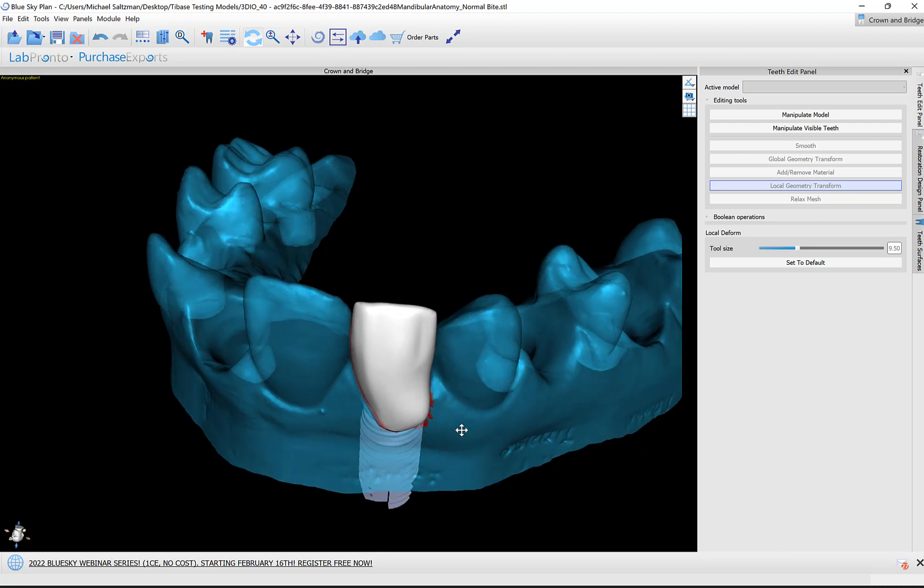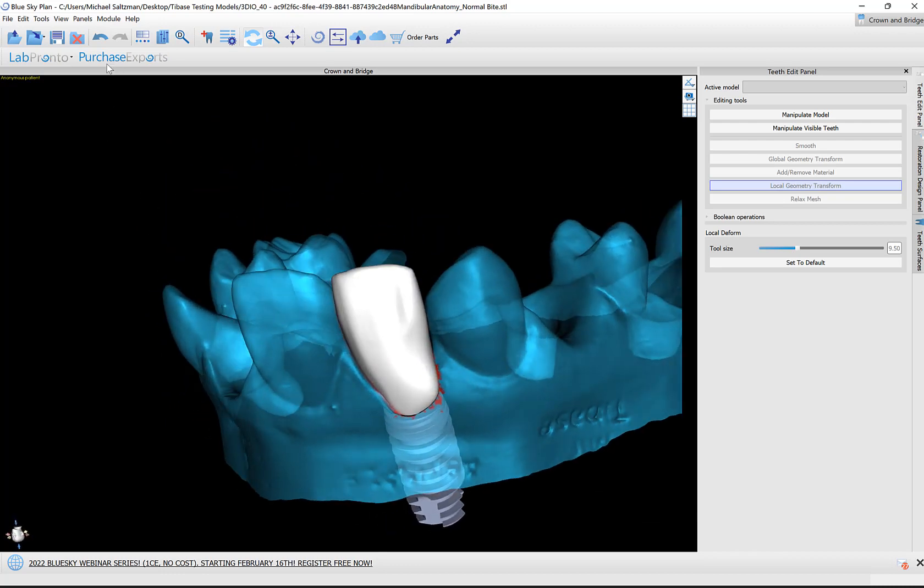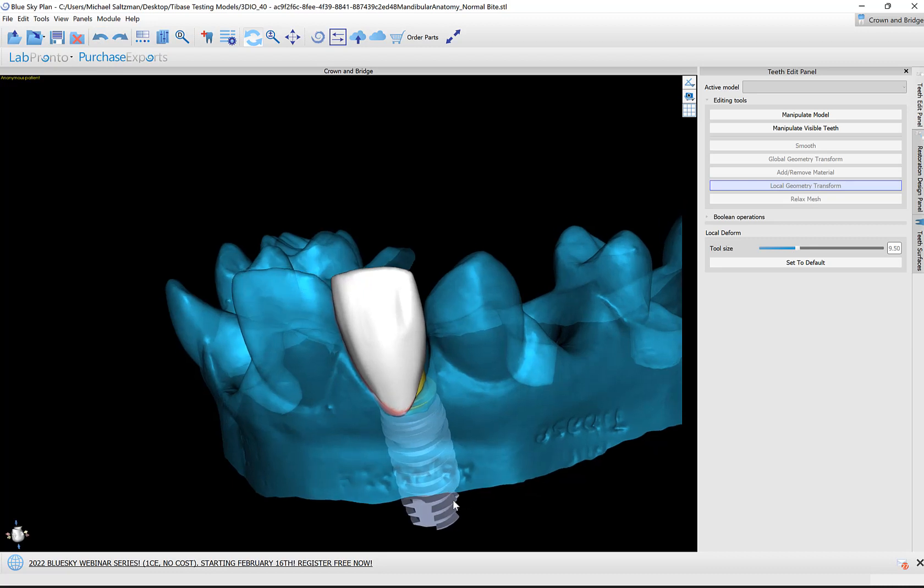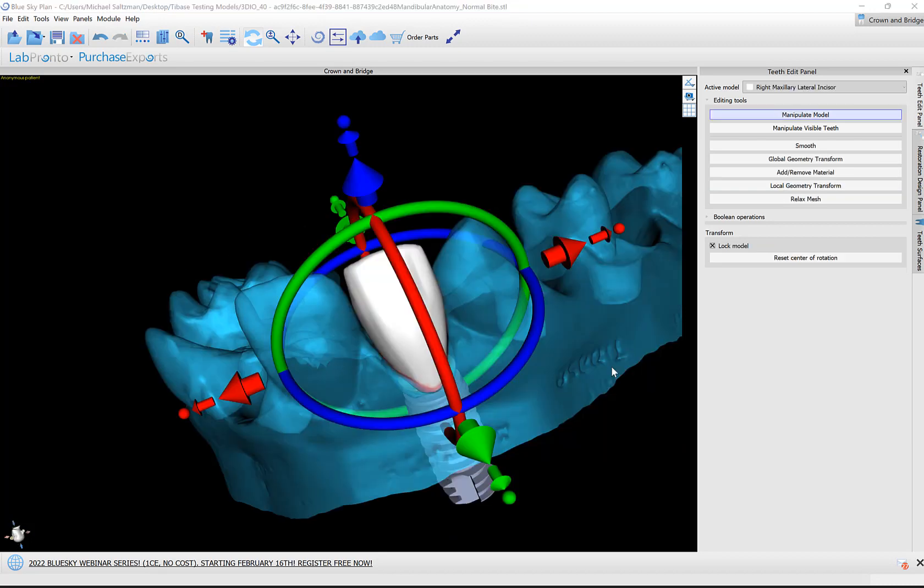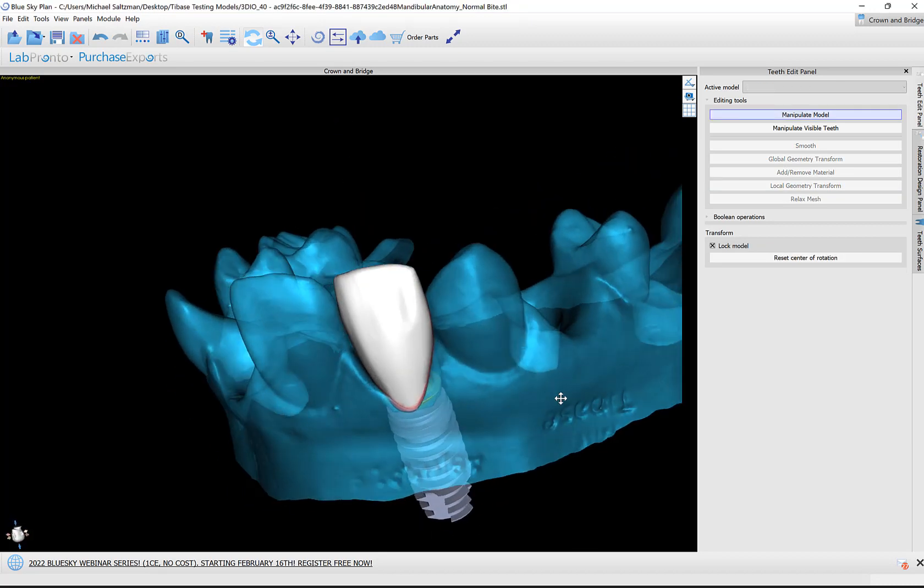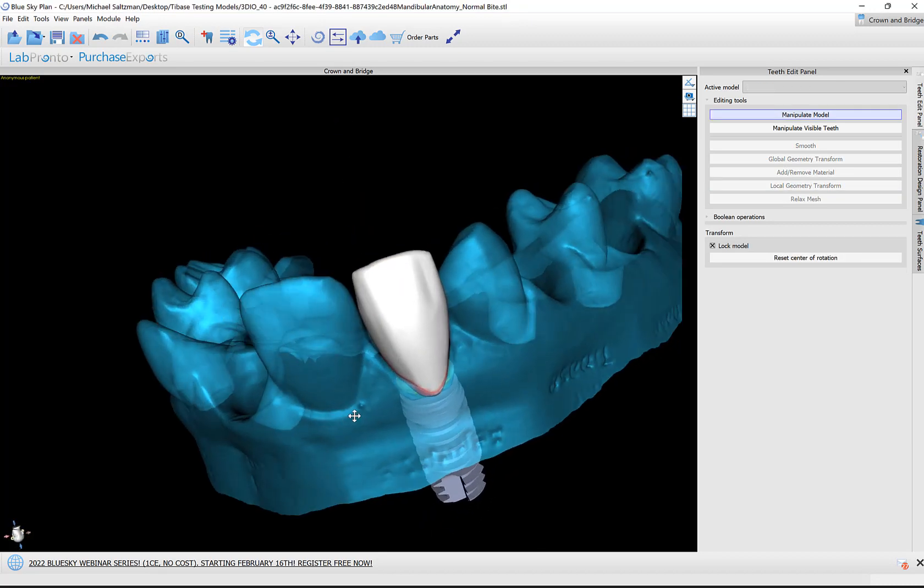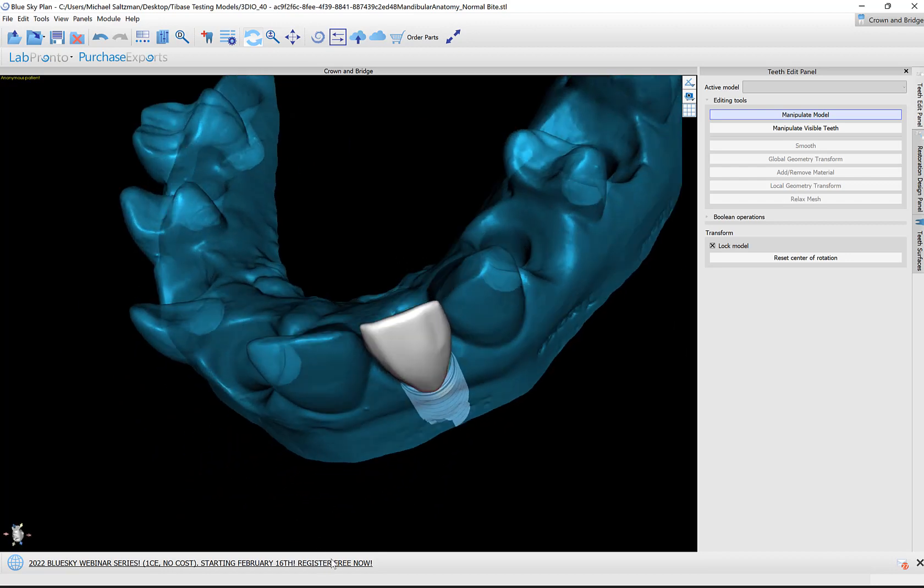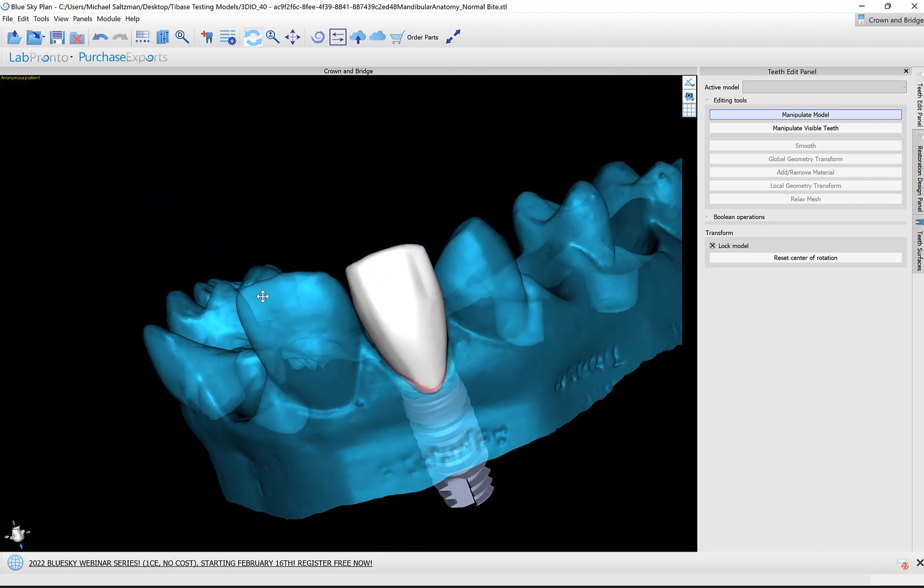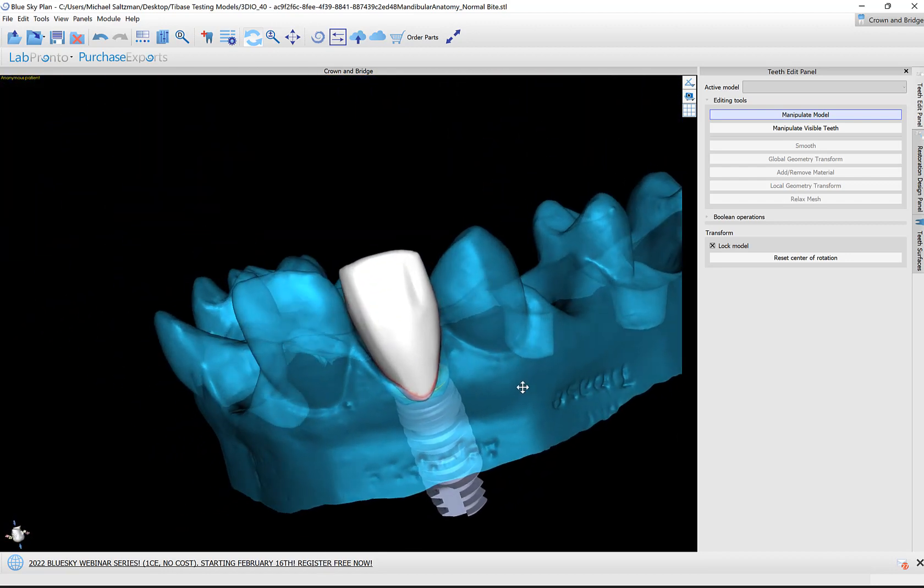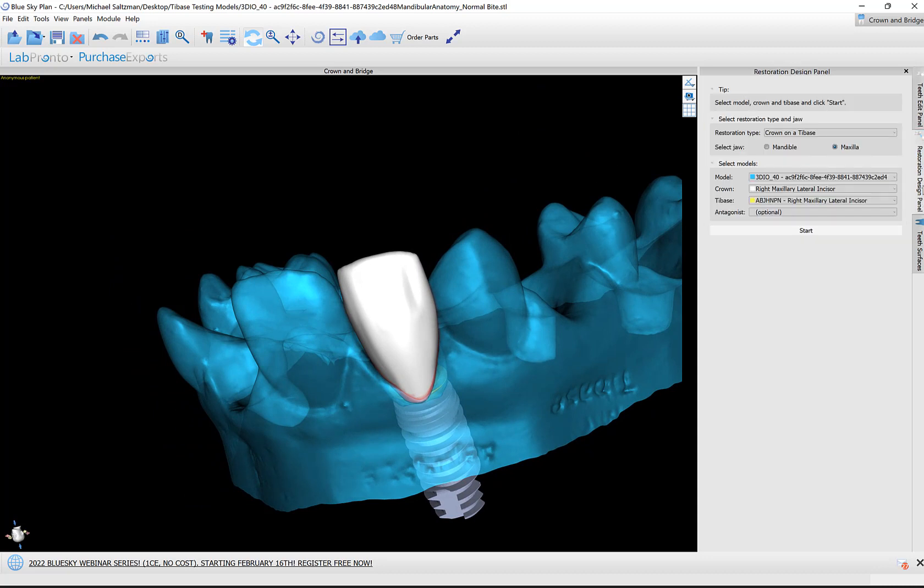If you did anything and want to undo it, like I'm not too pleased with how this came out, just click undo or Control-Z on your keyboard. I've used the tools a bit more. I think for our purposes we could continue. If it's a real case, obviously you could spend some more time perfecting this.